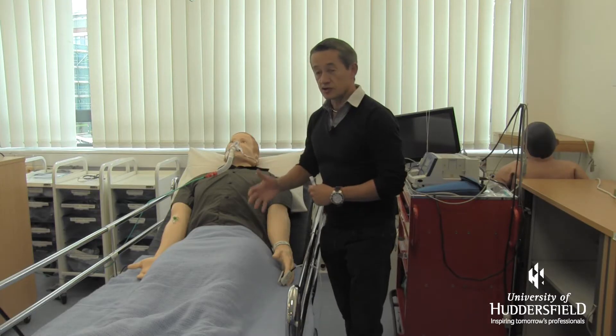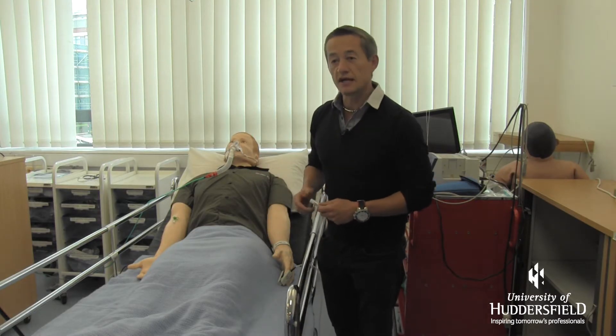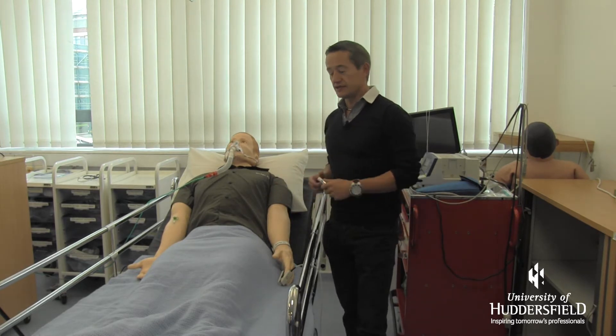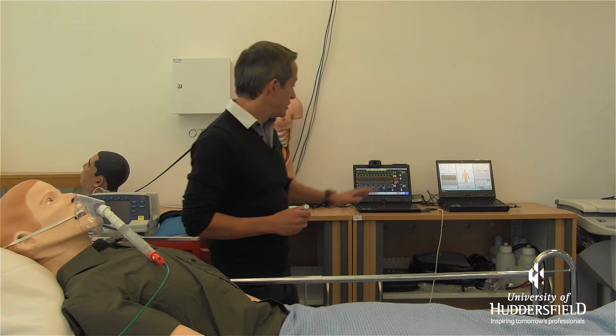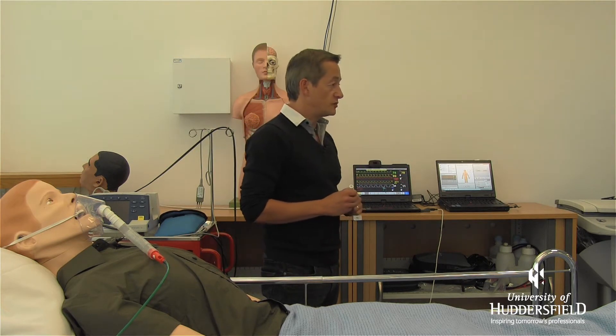He can pass urine, he can bleed, he can sweat, he can cry, he can talk. There are many things this gentleman can do and we can control him by the use of a computer here.